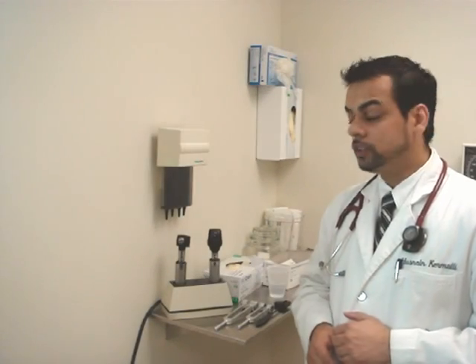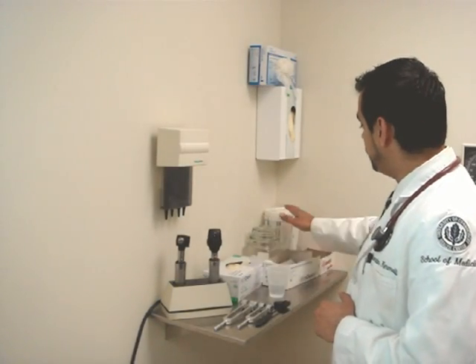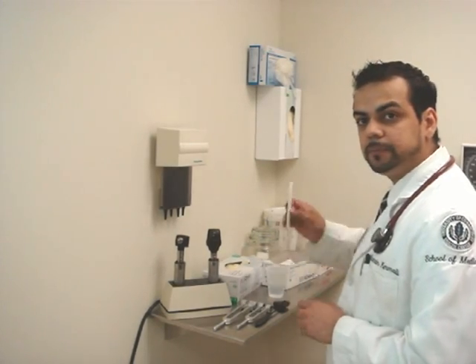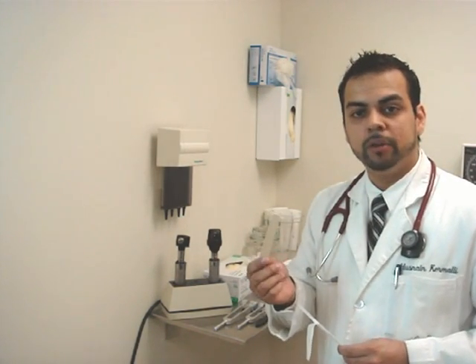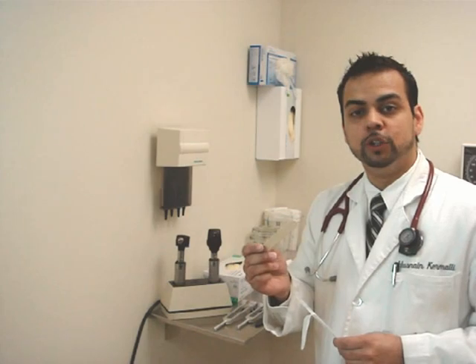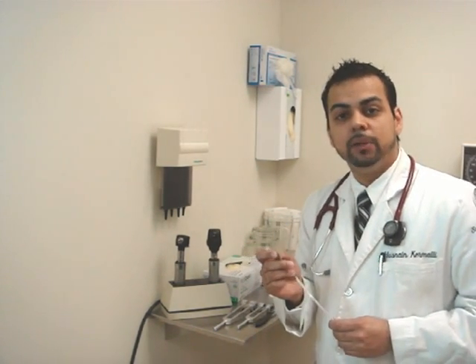The tongue depressor will also be found on the shelf, typically within one of the bins or its box. Its primary purpose is for depressing the tongue and examining the posterior oropharynx. However, like most things within the room, it can be used for other purposes — for example, pushing away the inner buccal mucosa to appreciate the gum health of the patient. As well, during the neuro exam, it can also be used to help elicit the Babinski reflex.